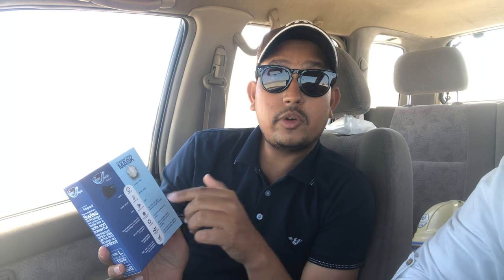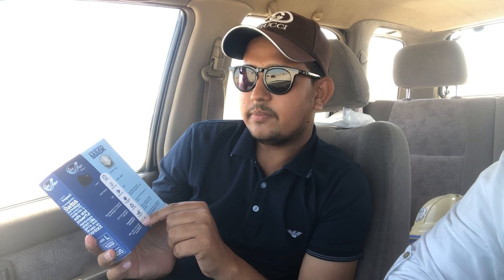This is N95. This is a conventional regular N95 mask, and this one is the FineGuard. They are saying you can use it for more than one year. The per-day cost comes to only $0.05. It is also N95-rated and it neutralizes immediately — meaning whenever you put it on, it neutralizes right away, so you don't need to wash it.